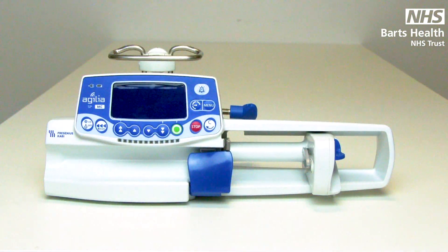The infusion device has a strong outer shell. If it is knocked or dropped in any way, you may not see any external damage. However, we recommend you still send it off to your engineering team so everything can be checked.